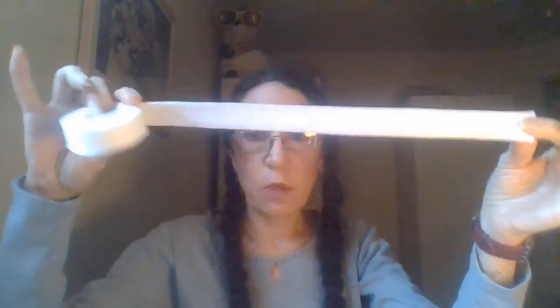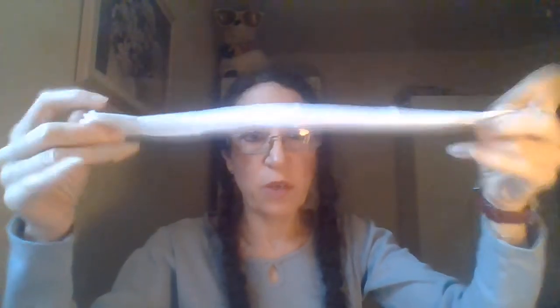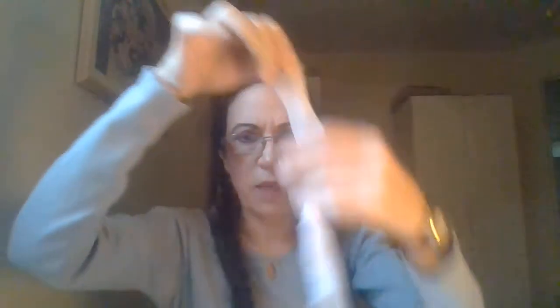The first thing you do is get out what they call an applicator — to me it's more like a jig. You want to pre-cut the amount you want to use. If you're going down the entire finger, I would say to use 2 feet. I'm just going to use a smaller piece because I only want to wrap the top of my finger — it should probably be longer than this. I practiced with this piece once already.